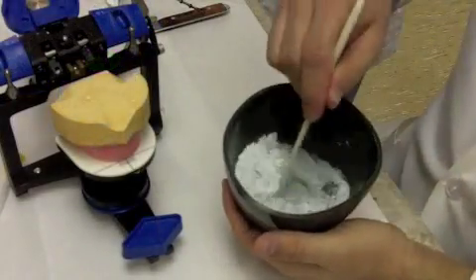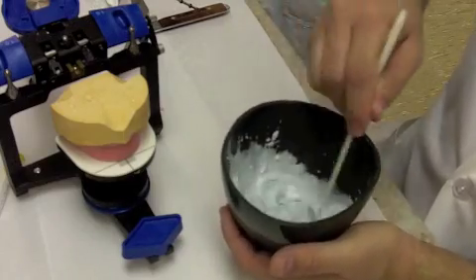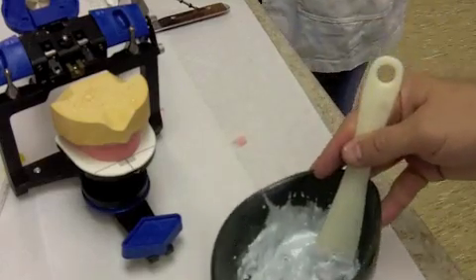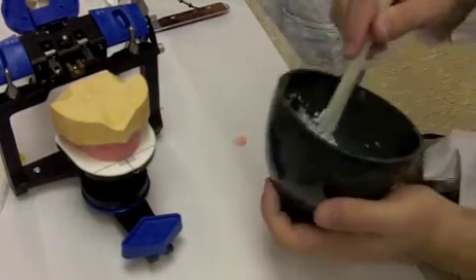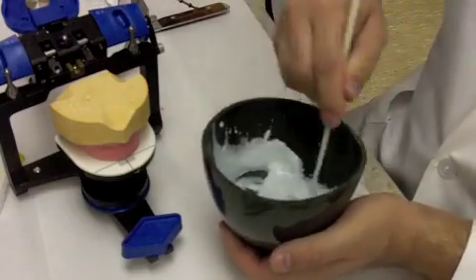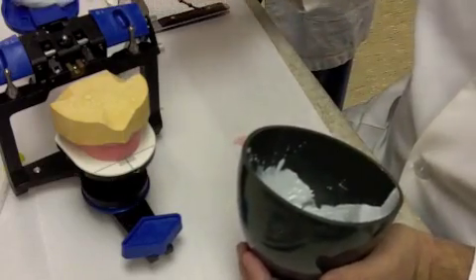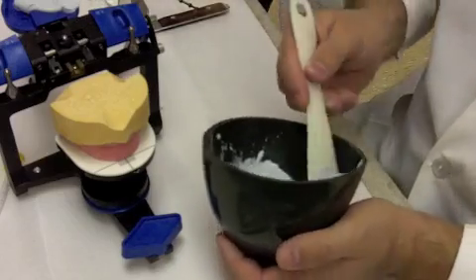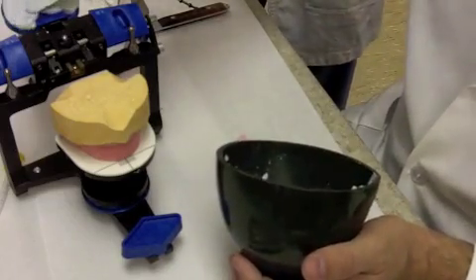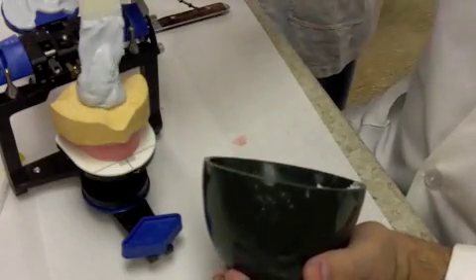So here we go. Here's one of those times where I am definitely going to use correct water to powder ratios whenever I'm mounting. You're going to take the mounting stone, you're going to mix it up. Obviously it's better if you have the water in the bowl first. It mixes the particles better. Then you're going to place some material into the mounting plate. And ideally you don't have to add a whole lot initially.